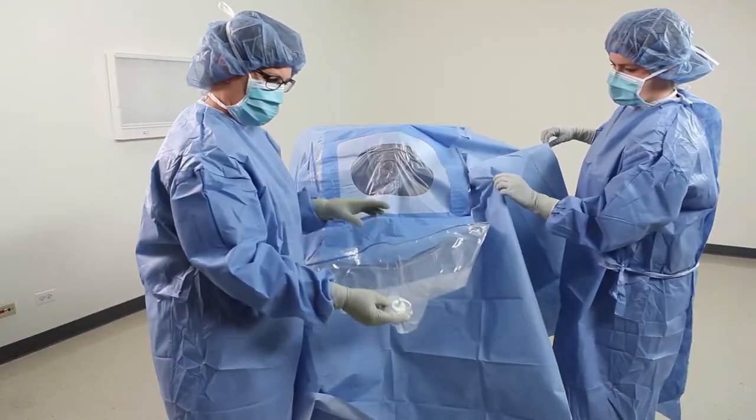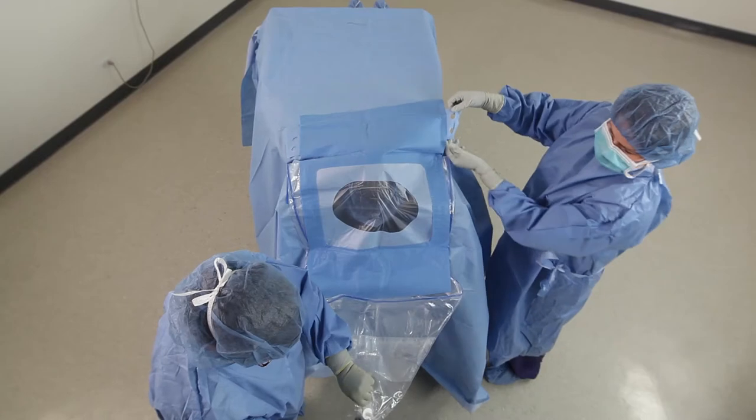The large pouch flips open for suction, and the tabs can be used for managing cables.